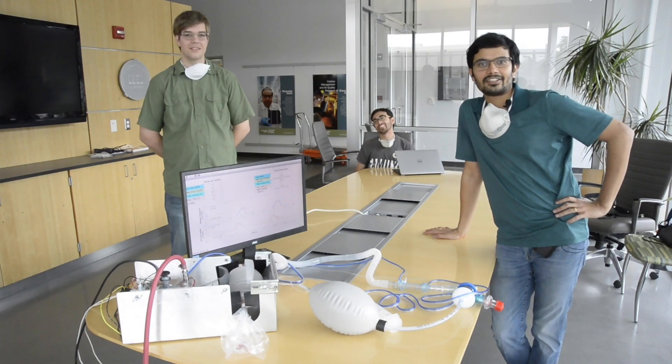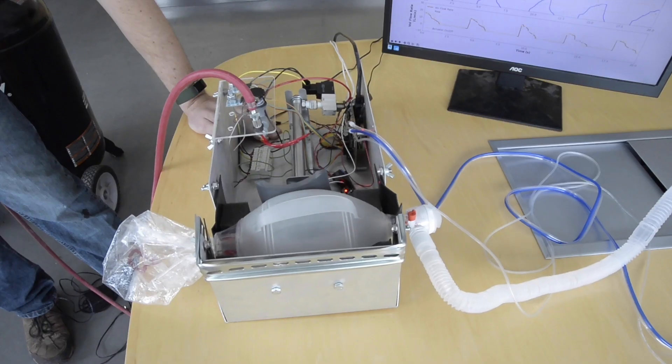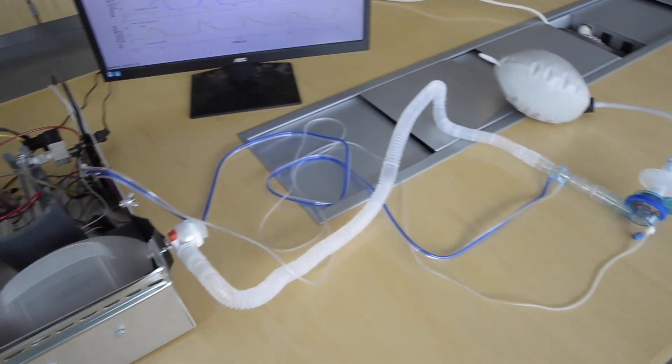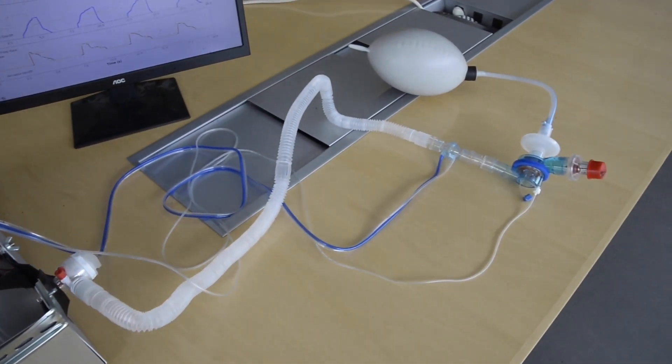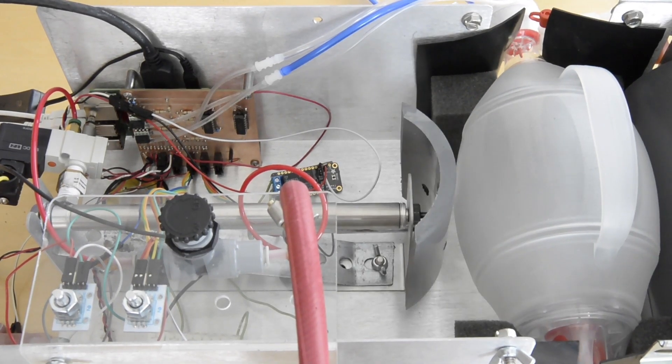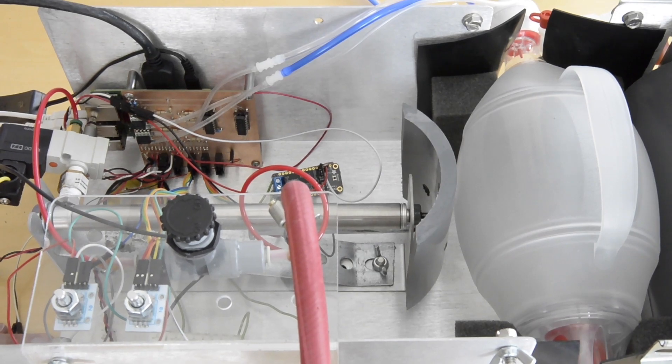Hi, we are OpenAirVentGT, a team at Georgia Institute of Technology working with Dr. Devish Ranjan to make a makeshift ventilator project. Our vision is to develop a highly modular, low-cost emergency use ventilator. Our hope is that this ventilator is implemented worldwide to address the current COVID ventilator crisis.